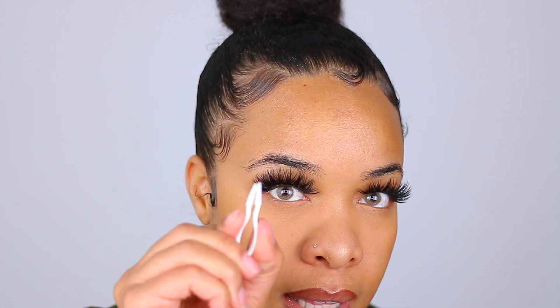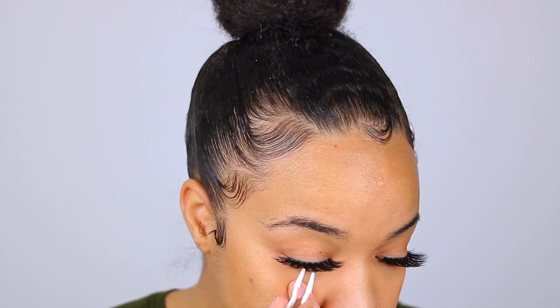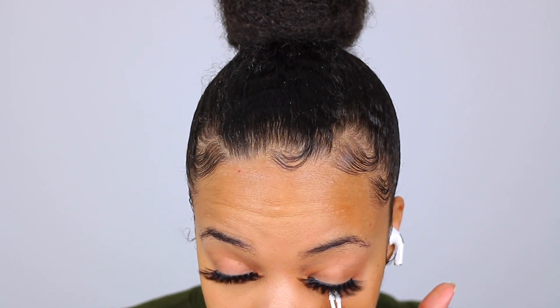Usually you just open your eyes — try not to blink with this because one swoop is all it takes. So I'm going to open my eyes like so, then you just take the tool, pinch it against the eye, and out comes the lens. I'll quickly pop off the other side the same way — you just press it against the eye, squeeze it, and out comes the lens.